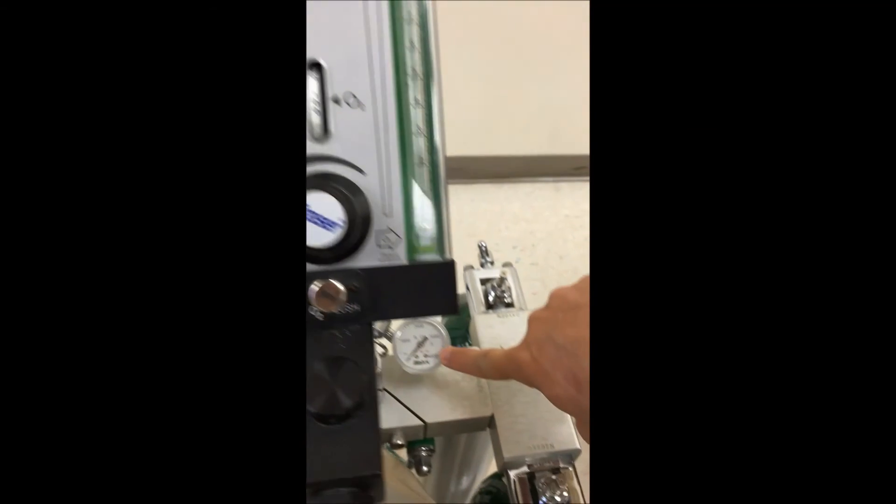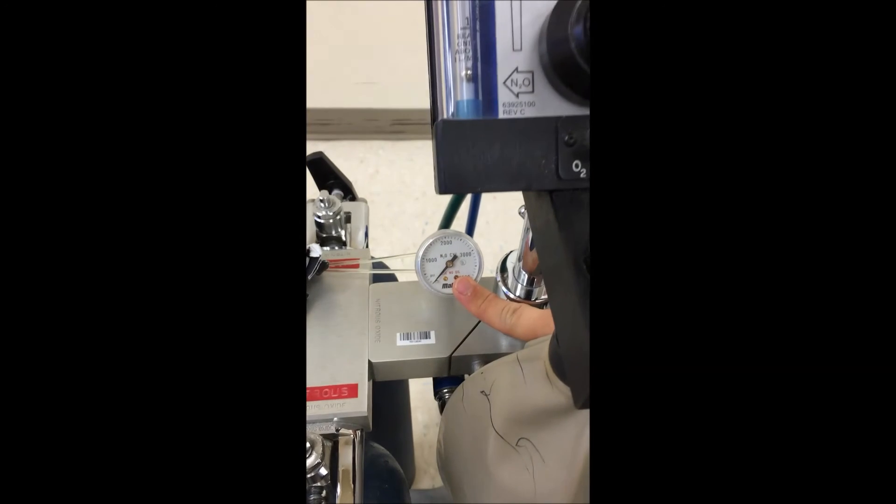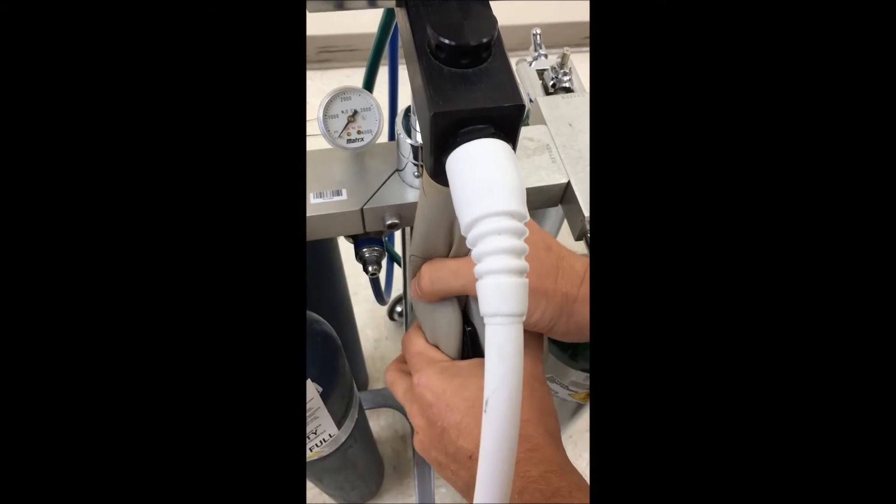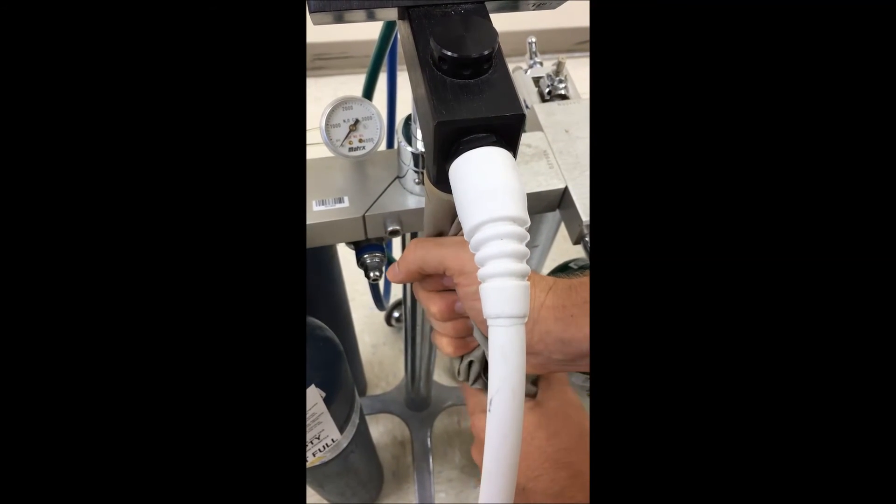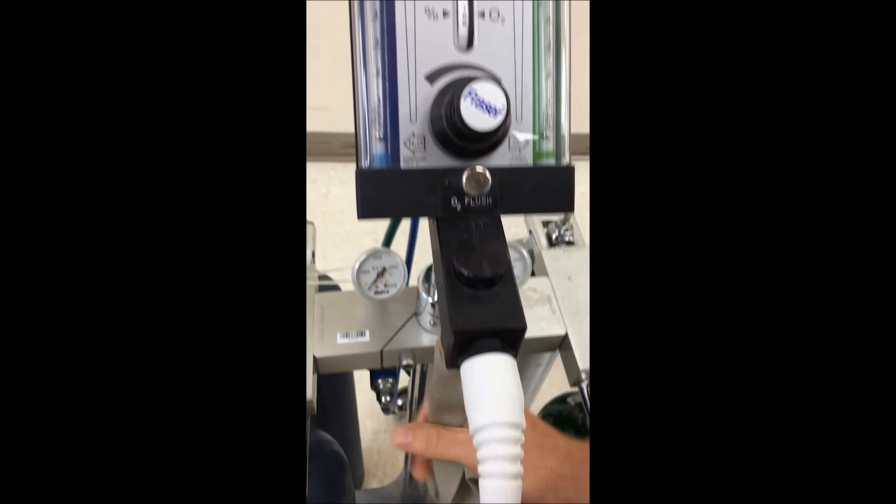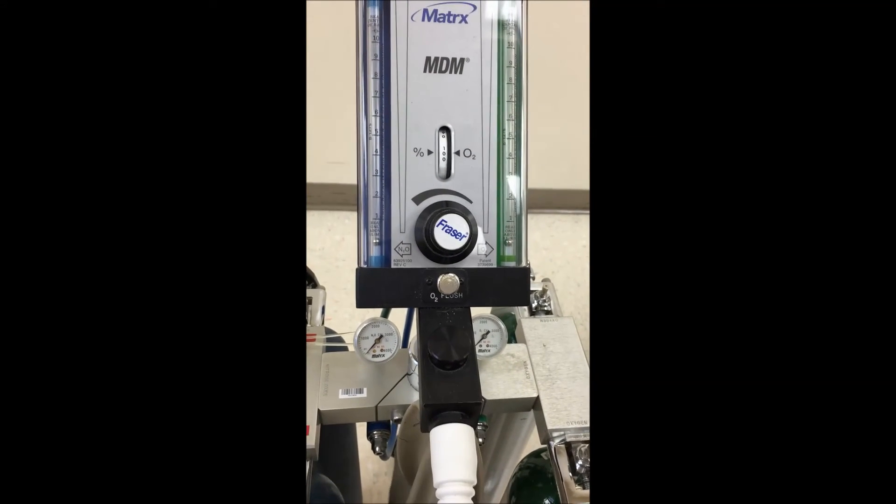You're at zero, zero, PSI at zero, PSI at zero. You've gotten everything out of the bag. You're ready to turn your nitrous back in.